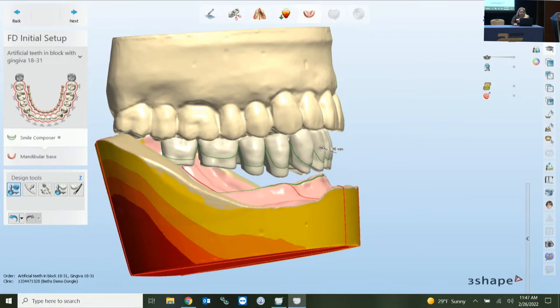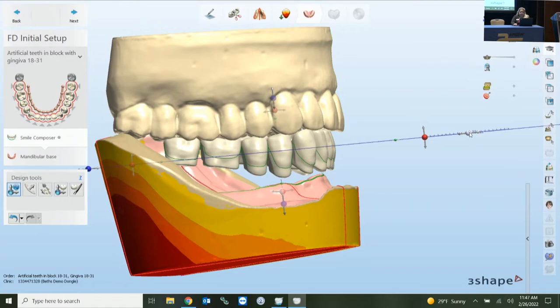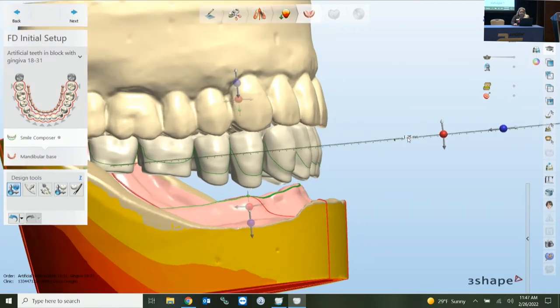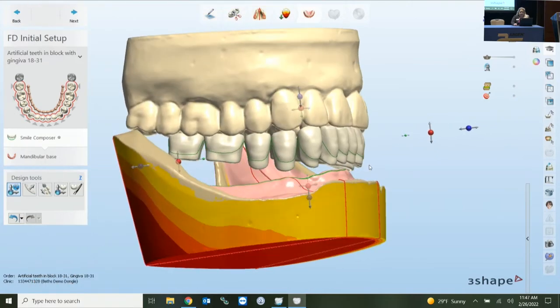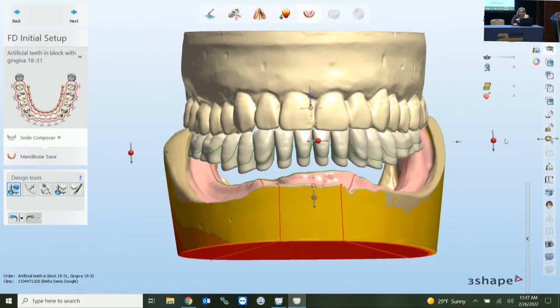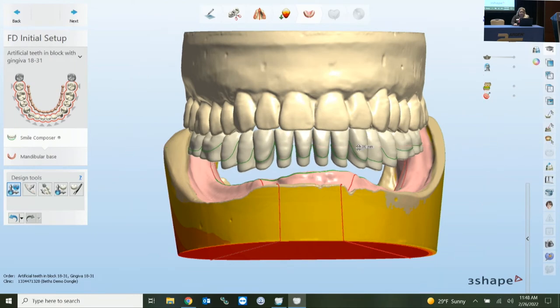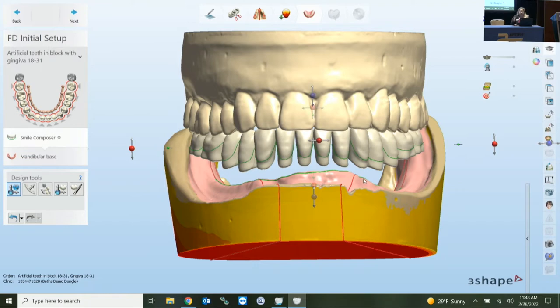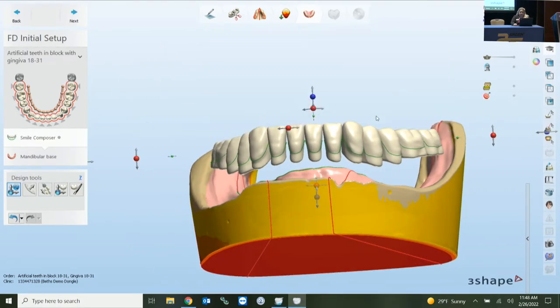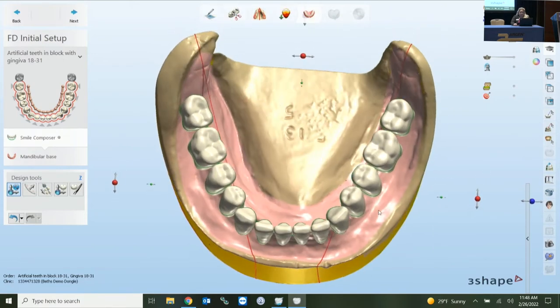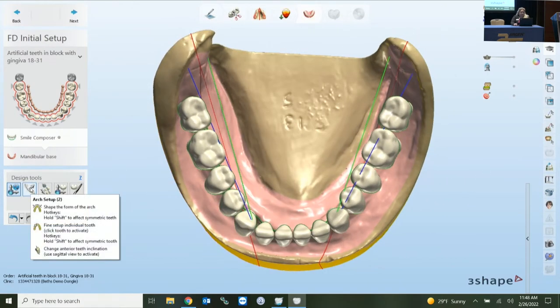You can grab the pivot point and move it. Blue indicates a static reference, and the green arrow brings it forward from the anterior perspective. You can do different things with a single arch in global mode, but it only works so far. You need to start getting into individual movements. When you click the Arch Setup box from an occlusal perspective, hovering over it gives you indications of what you can do as far as moving the teeth.